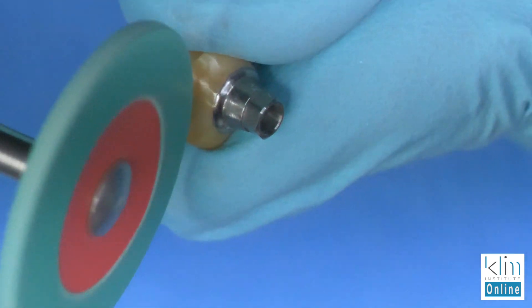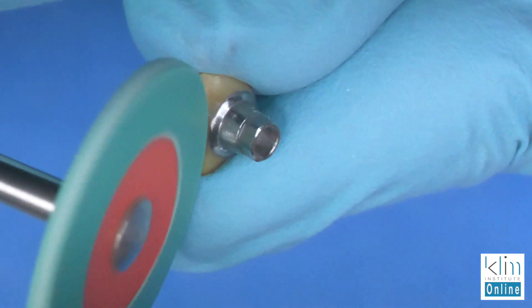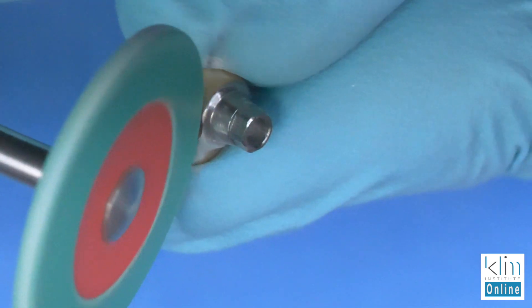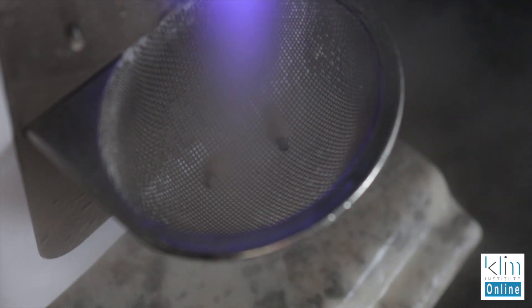I'm going to use the JK03 Meisinger lab kit to go through the polishing techniques in that cervical area that's subgingival. I do want to do a little shaping right where the zirconia abutment comes off that tie base because of minimal thickness issues when you design it and machine it. I want to slenderize that, particularly if I'm sub-bone on the tie base emergence off that implant. Once we polish that, we're ready to go — we're going to steam clean that before fitting it in the mouth.